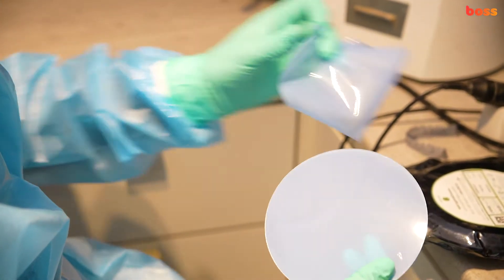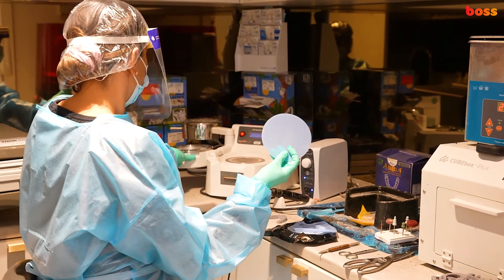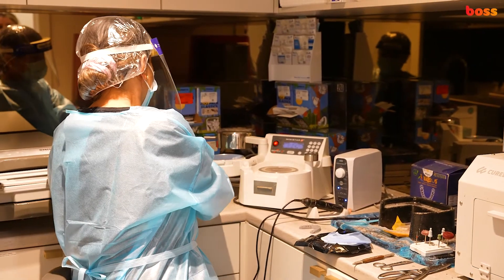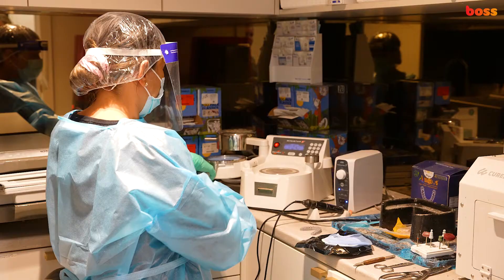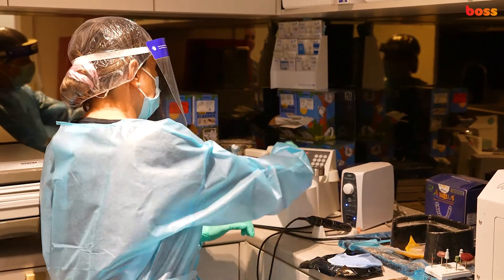So what she's obviously doing is getting the blank ready in the Ministar. The Ministar has a vacuum formed instrument that is going to help us heat the blank and vacuum form the retainer onto the 3D printed model.